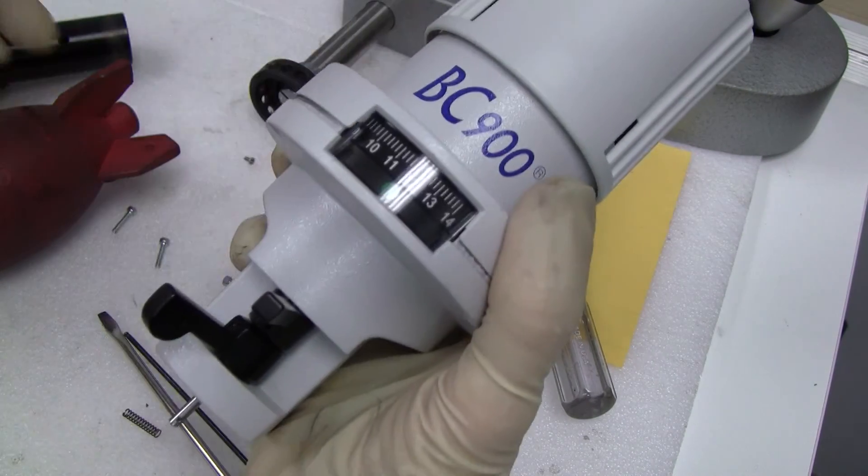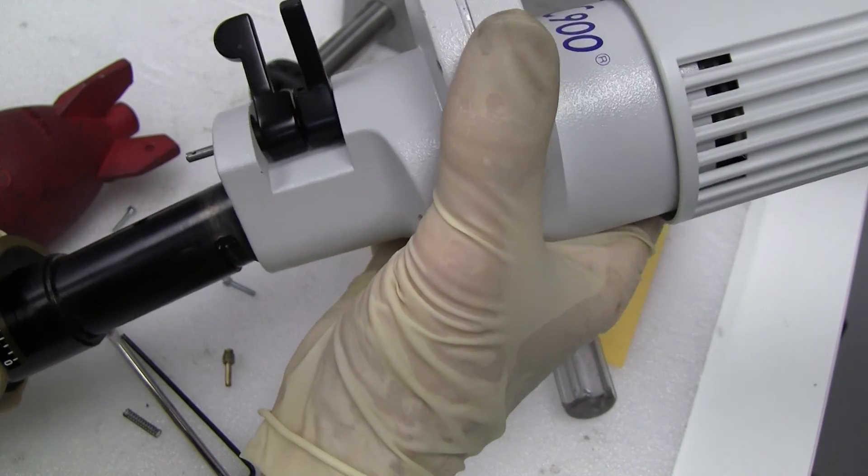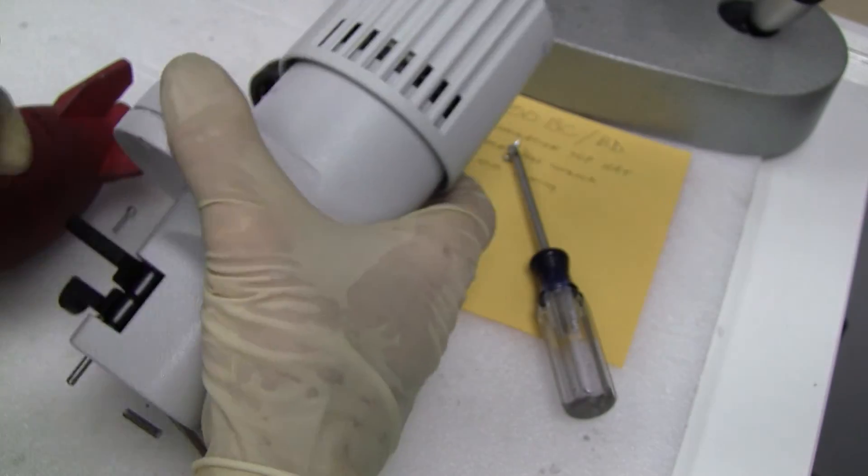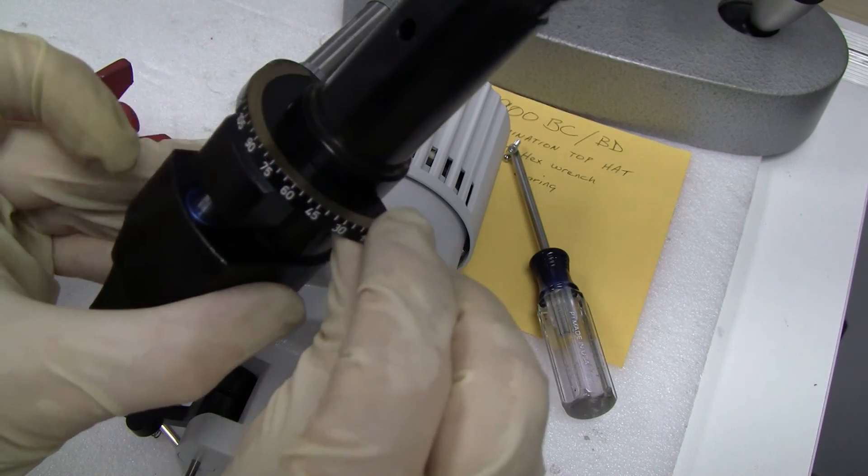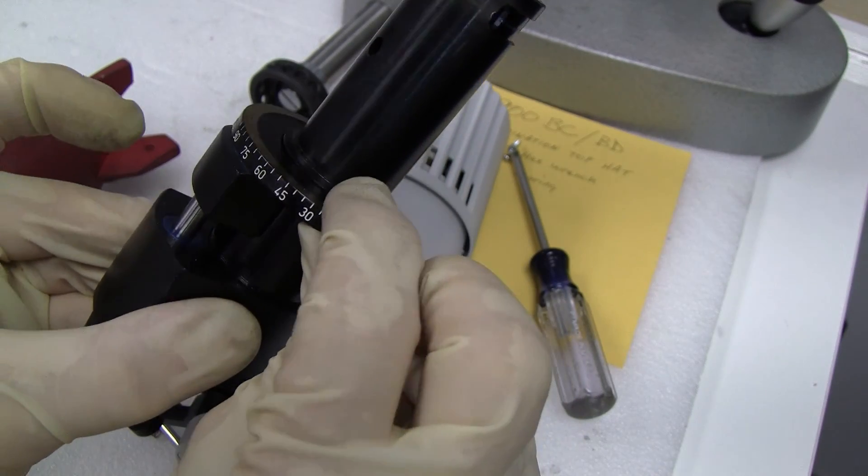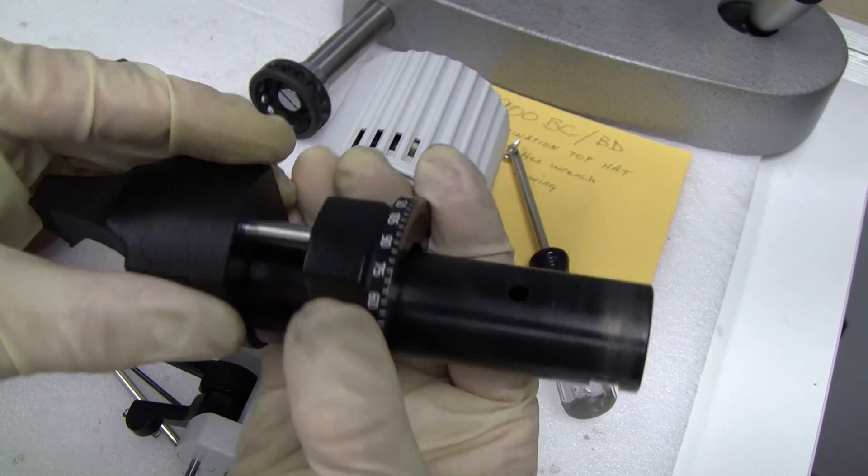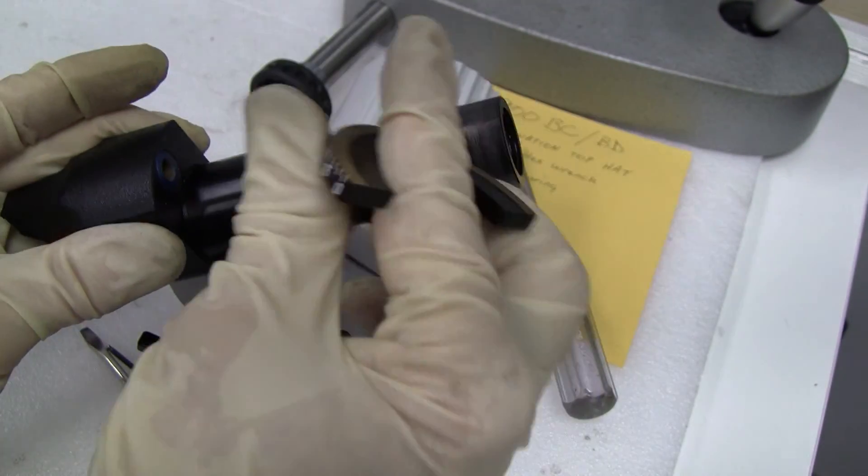And it's time to put it back on. Go ahead and slip it on the tube. Oh, also, I wanted to show you that you can take this elevation table off. And you can clean it and re-lube it if it needs it.